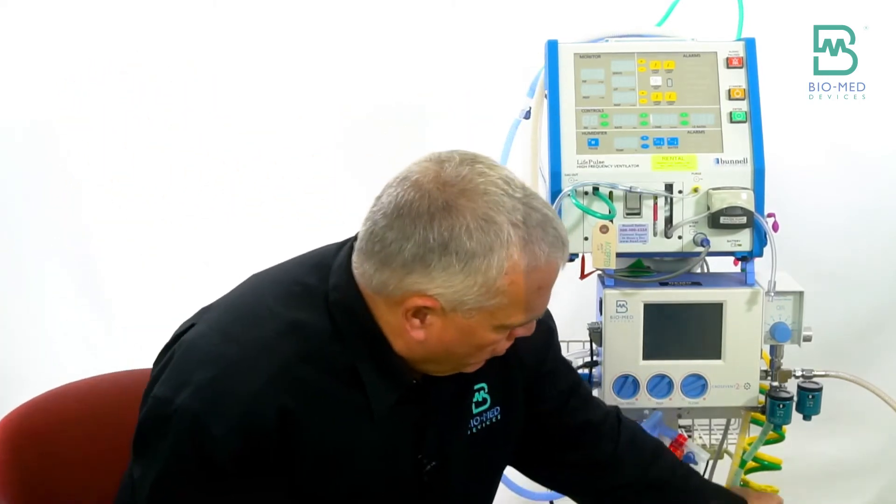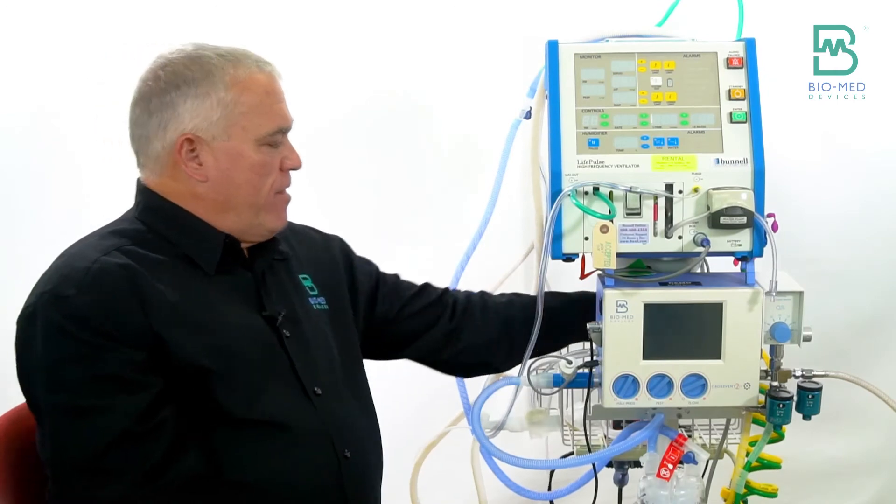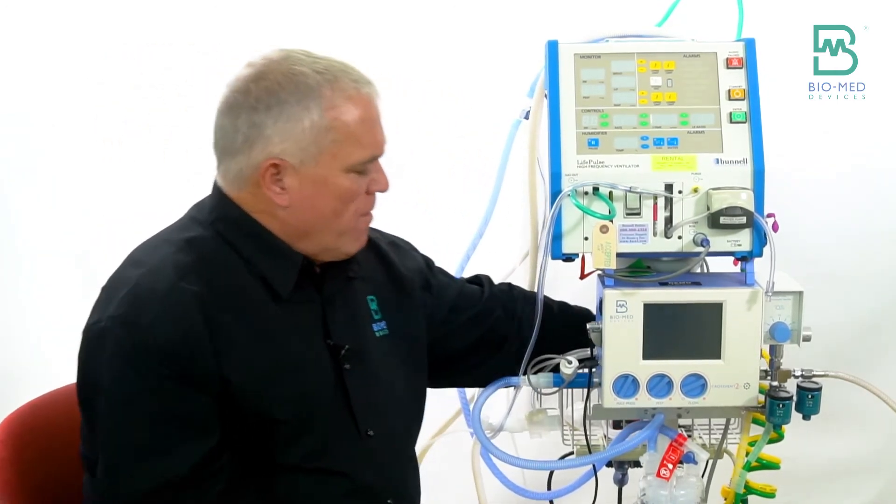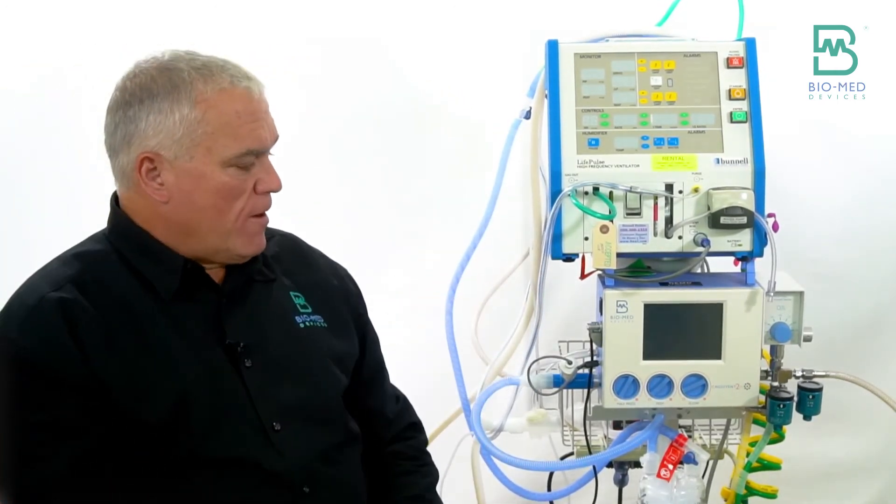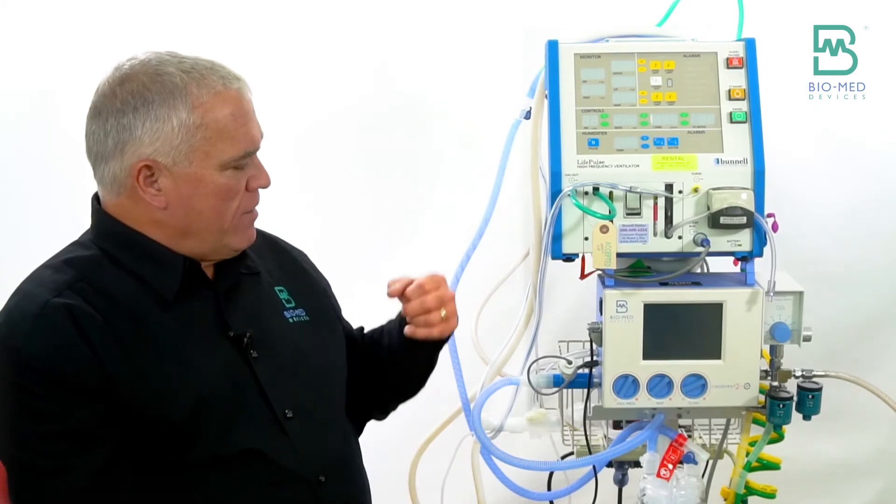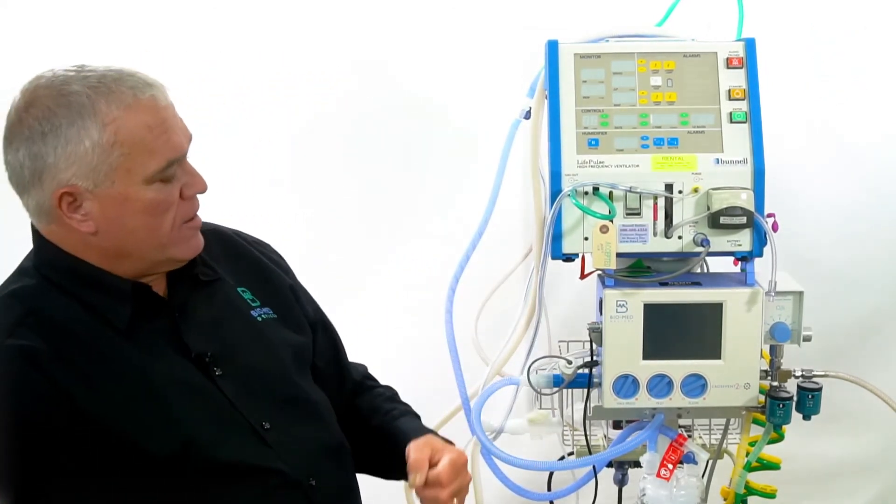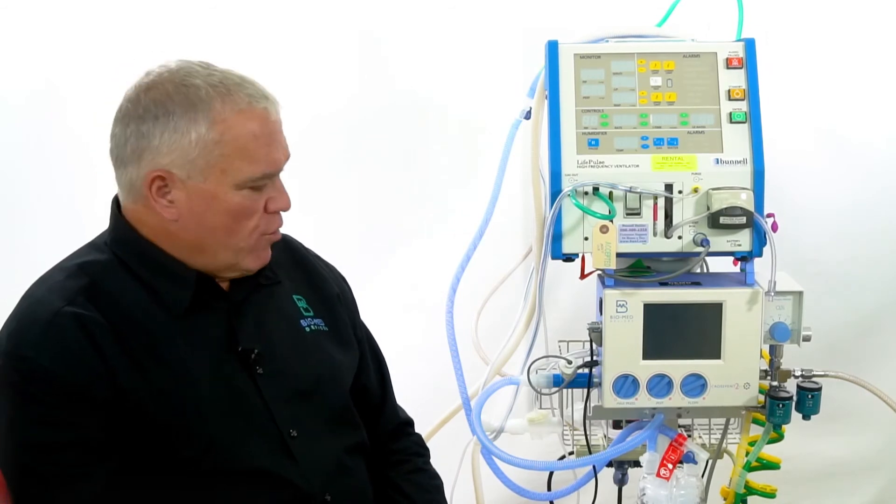Then we have our dual hoses. They're nice and easy to stow. They stay up off the floor. They're fused together except for the ends so they don't get tangled with one another.